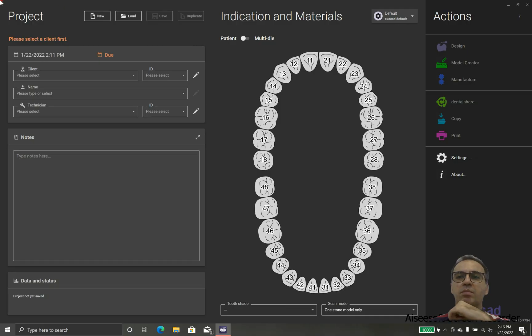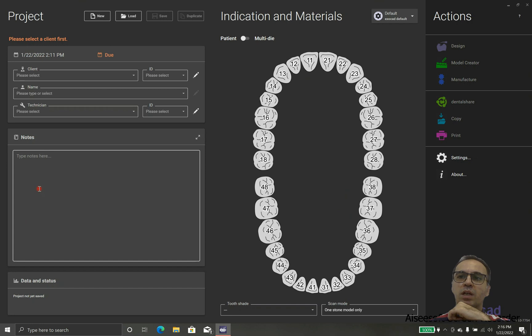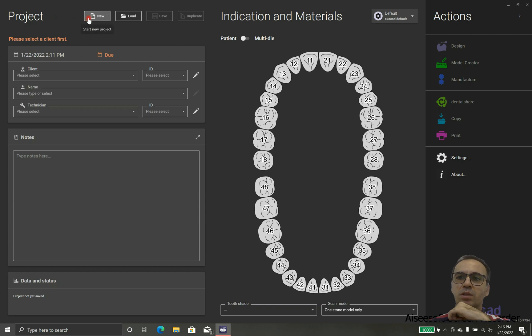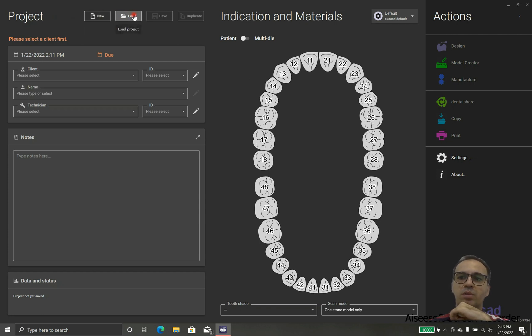Hello, I'm Dr. Raffae and today I'm going to teach you how to design a simple crown and how to use the ExoCAD interface.